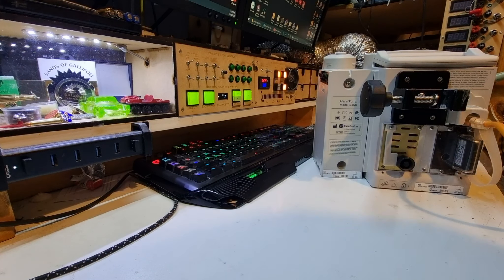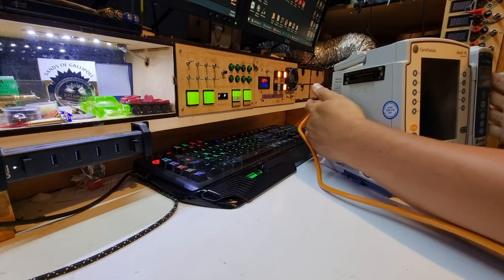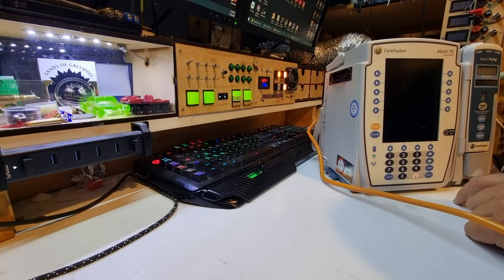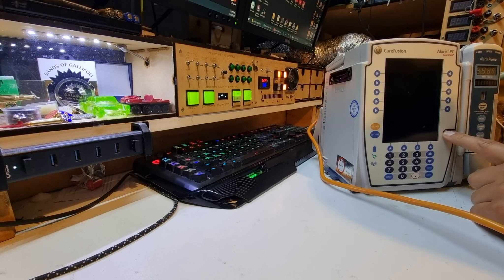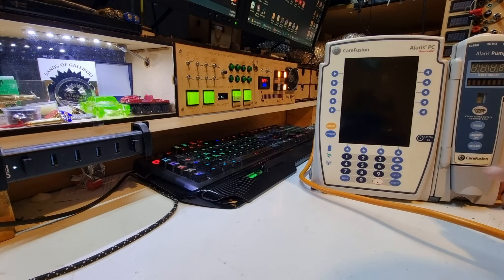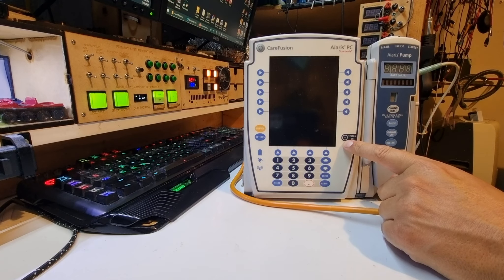We'll find out if we trip the RCD. I'm going to plug into power — three, two, one. Immediately we can tell... well, there is a green light, okay. So the system is on, and there's a little pop in the speaker. That says power supply or battery problems. System on, goes pop in the back. Let's unplug and open up. I tried to start the system with the mains disconnected and it's indicating the battery is flat.